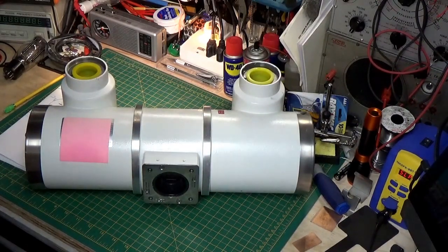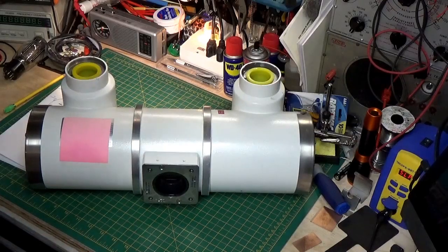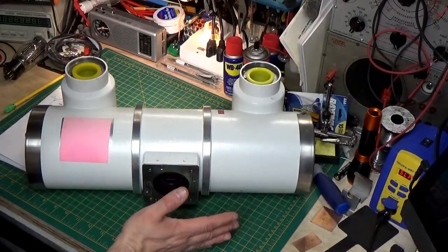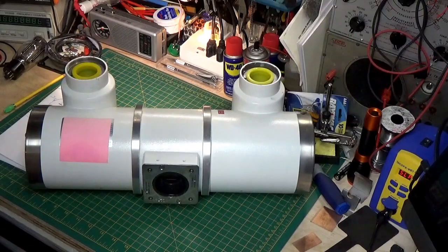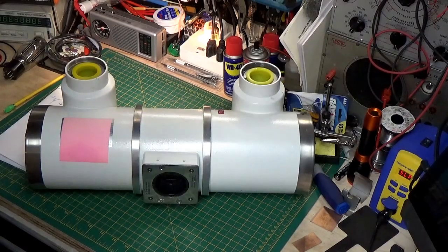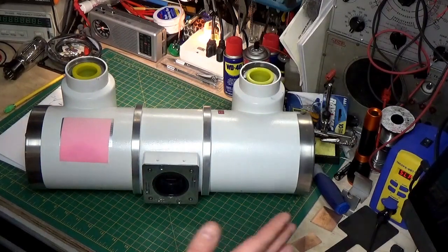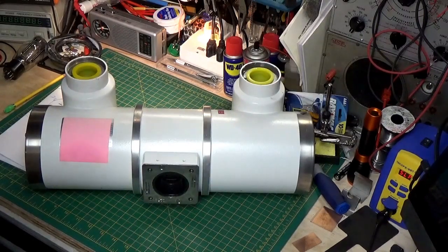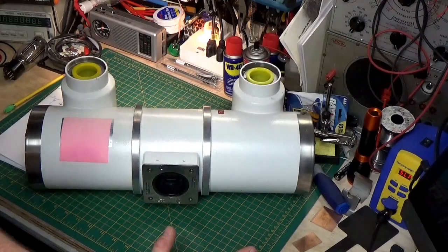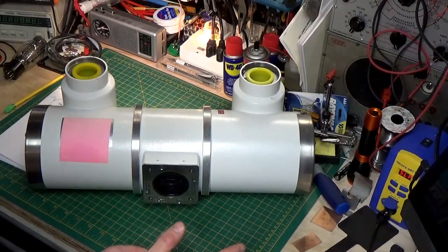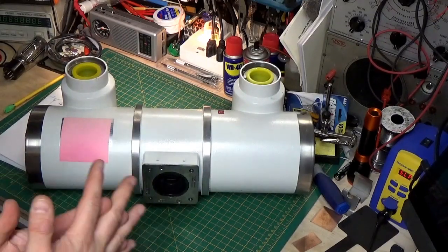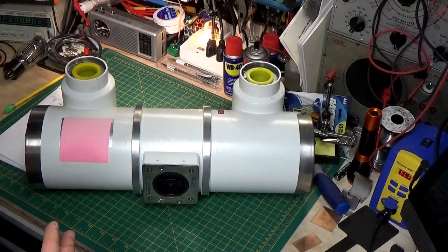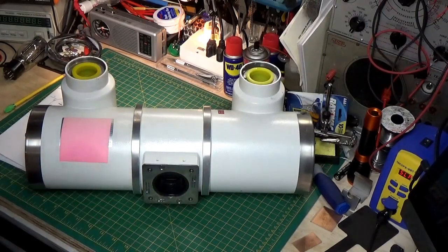So, you might say, then, why don't we turn it up until it all penetrates? Well, how does an X-ray work? How do we see an image? If I take my hand and I place it in front of the X-ray tube, if I turn it up too high, all the X-ray will pass through my hand, and I won't see my hand. I will only see the radiation striking the film or the image detector. If I turn it too low, it all gets absorbed by my hand, and I get a blank image. But if I turn it up just right, Goldilocks and the three bears, the dense tissue, which is bone, will absorb the radiation. But the soft tissue, skin, will pass the radiation through or it will penetrate through. And what this will do is cast a shadow of your bone. That's really all X-ray is doing. It's a balancing act between penetration and absorption.